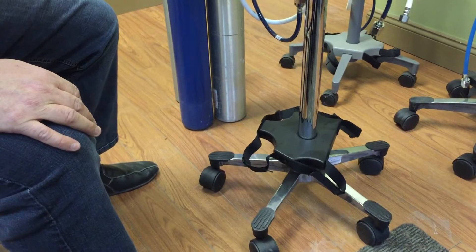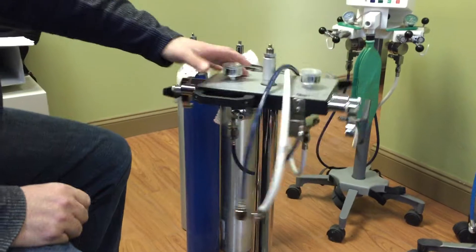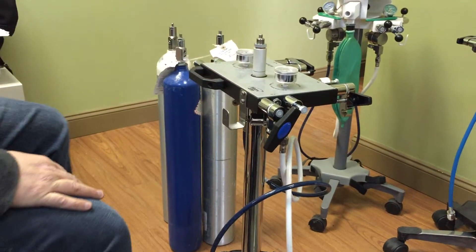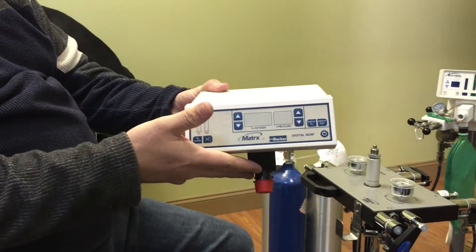See how that's sitting there? Once that's in place it actually gets tighter with time. Now once that is done, release this, we're actually going to assemble the head. The head when it comes in is basically shipped to you like this.